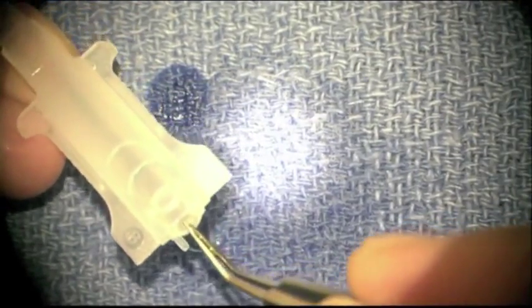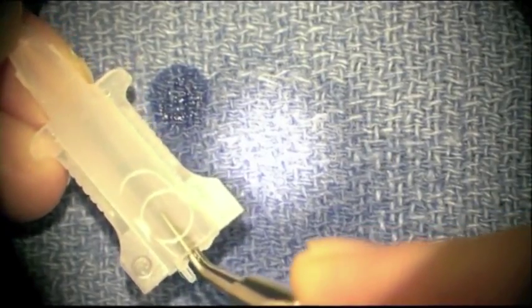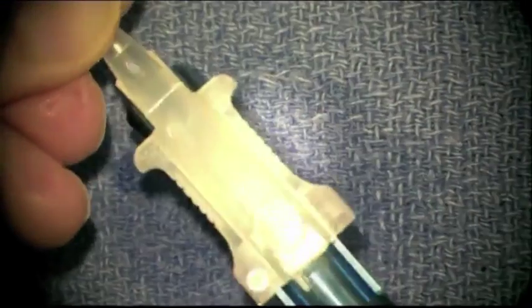Put your tips together and gently push down into the depression of the cartridge. Then advance the intraocular lens until the trailing haptic locks at the posterior fixation tab.